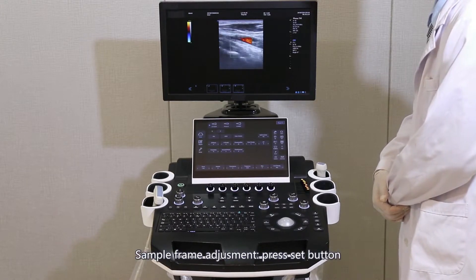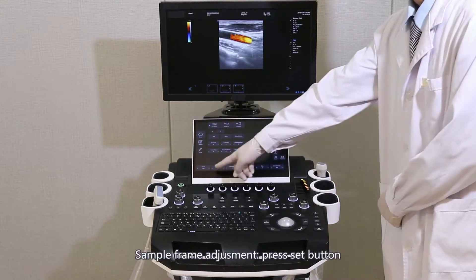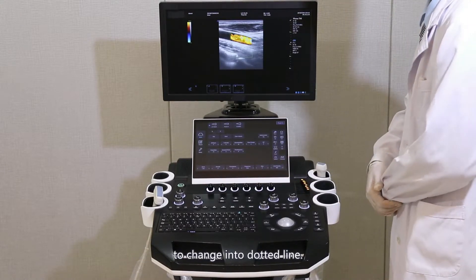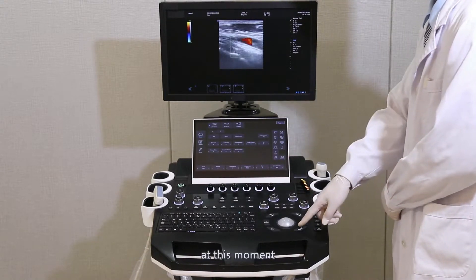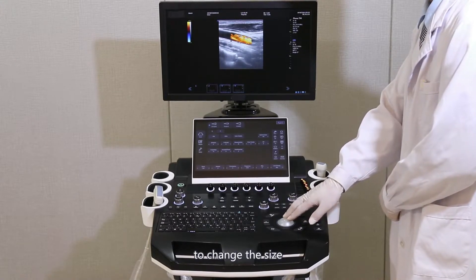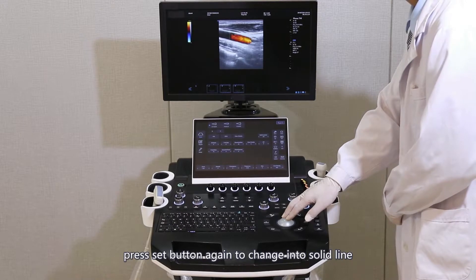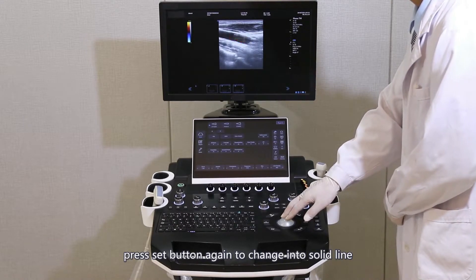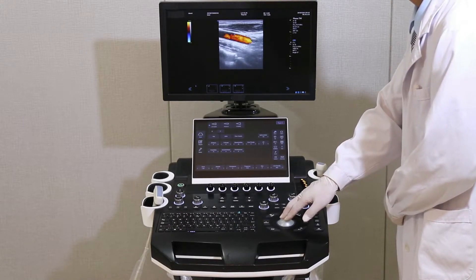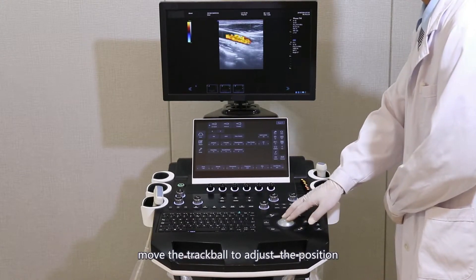Sample frame adjustment: press the Set button to change into a dotted line; at this moment, move the trackball to change the size. Press the Set button again to change into a solid line. Move the trackball to adjust the position.